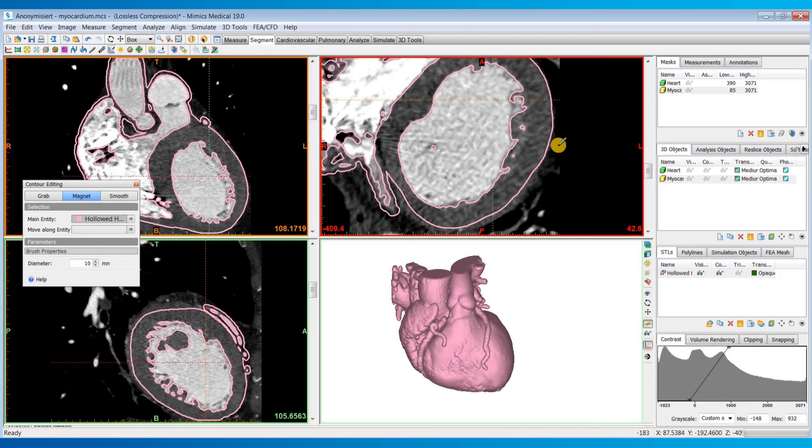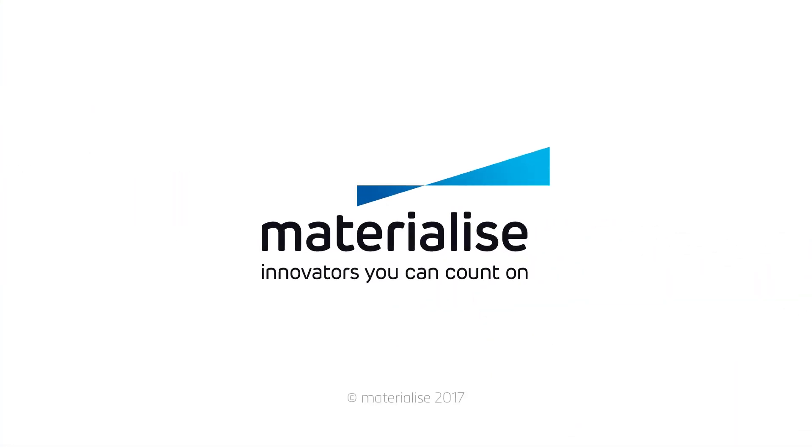I hope you found this video helpful for those cases where you actually want to represent the patient's myocardial thickness instead of just a uniform value that the hollow tool lets you use.